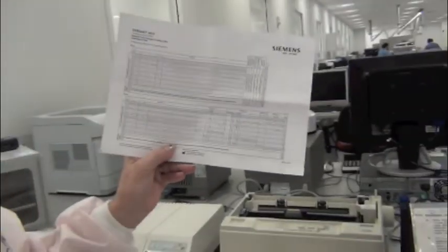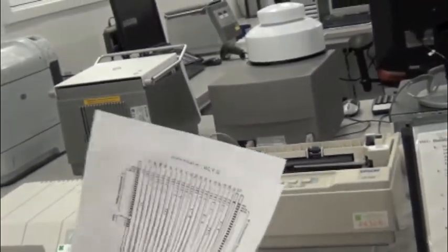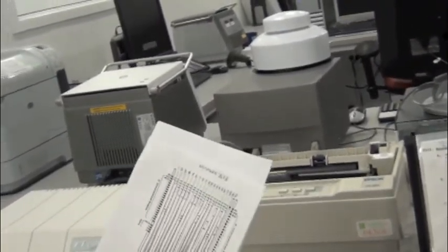according to Siemens line probe assay. So that's not like a computer printout, that's someone had a... No, this is manual. This is old school. Yes, we have to read them ourselves, just like Western blots. We have to interpret them ourselves.